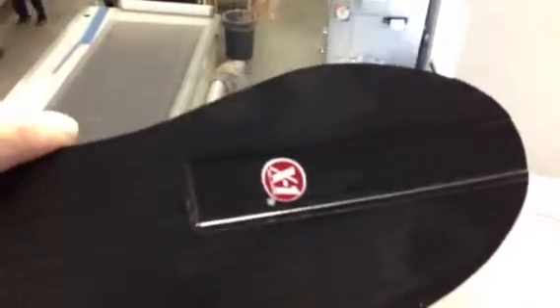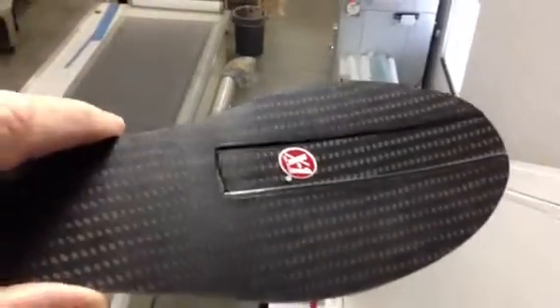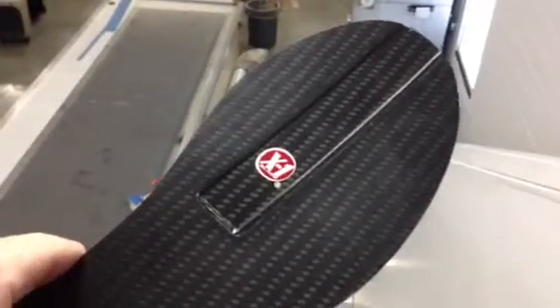I have quite a few of these out in the market and they seem to be working just great, so I recommend that if you're suffering from Neuroma pain, this might actually help with the swelling of that Neuroma.